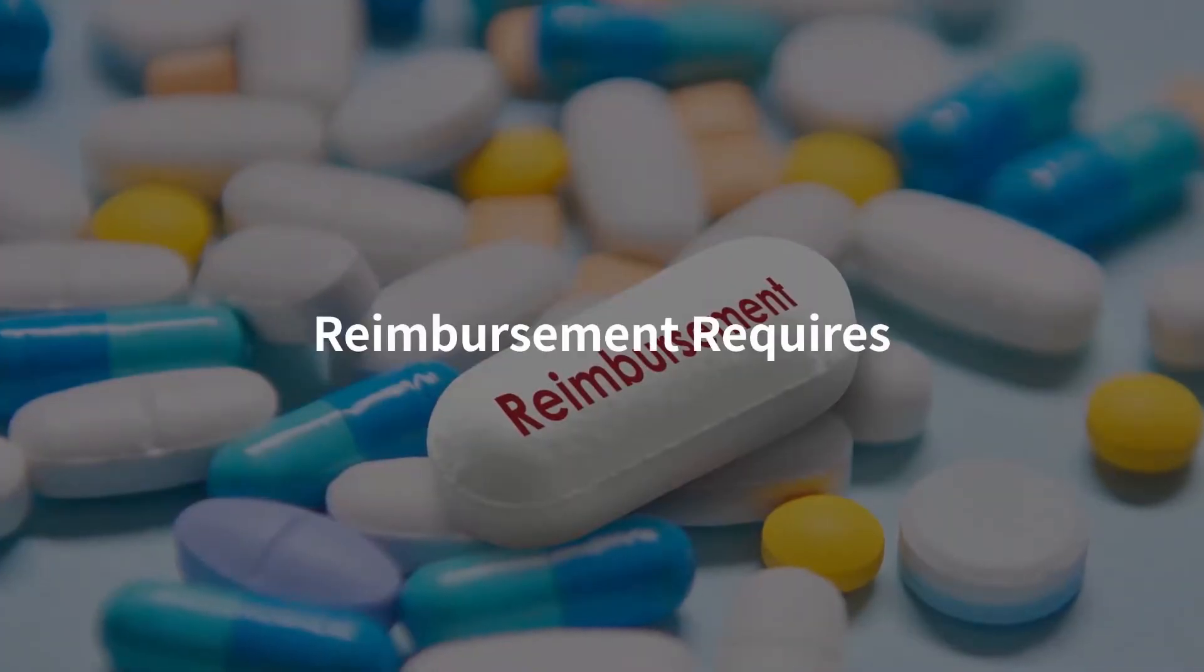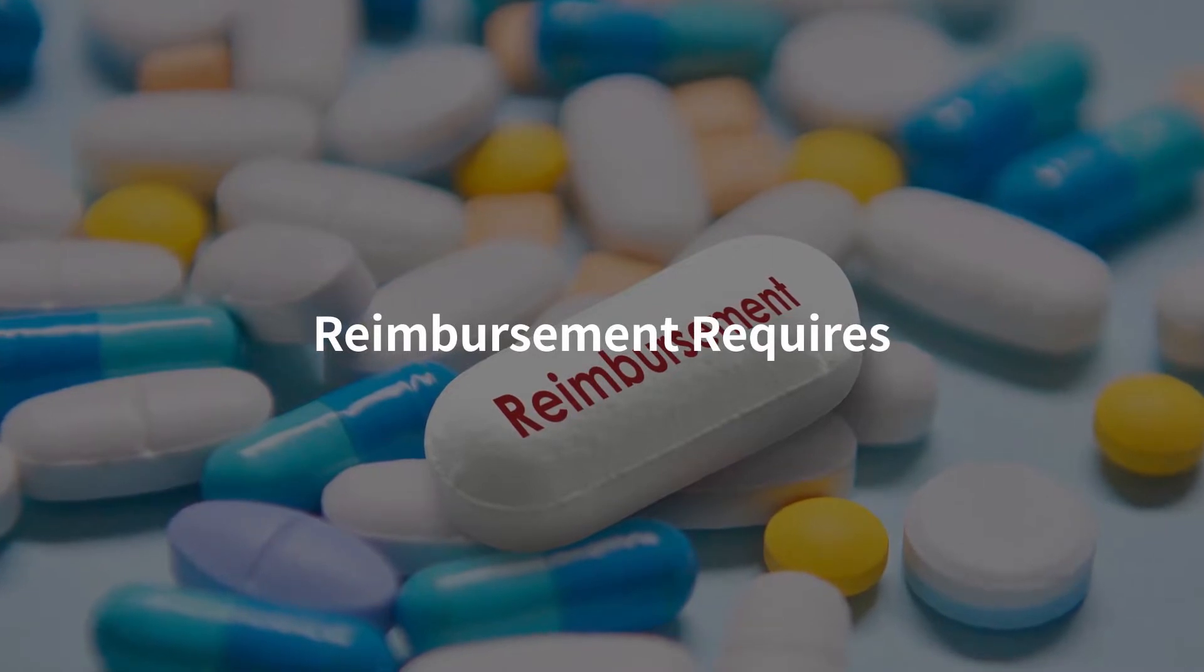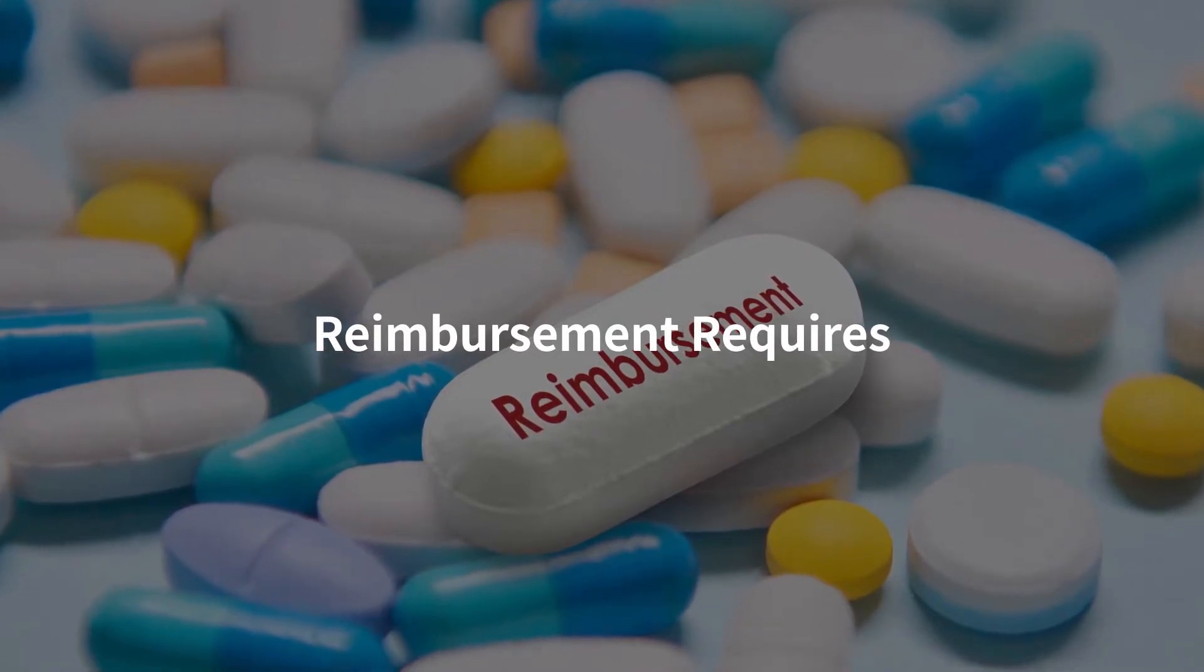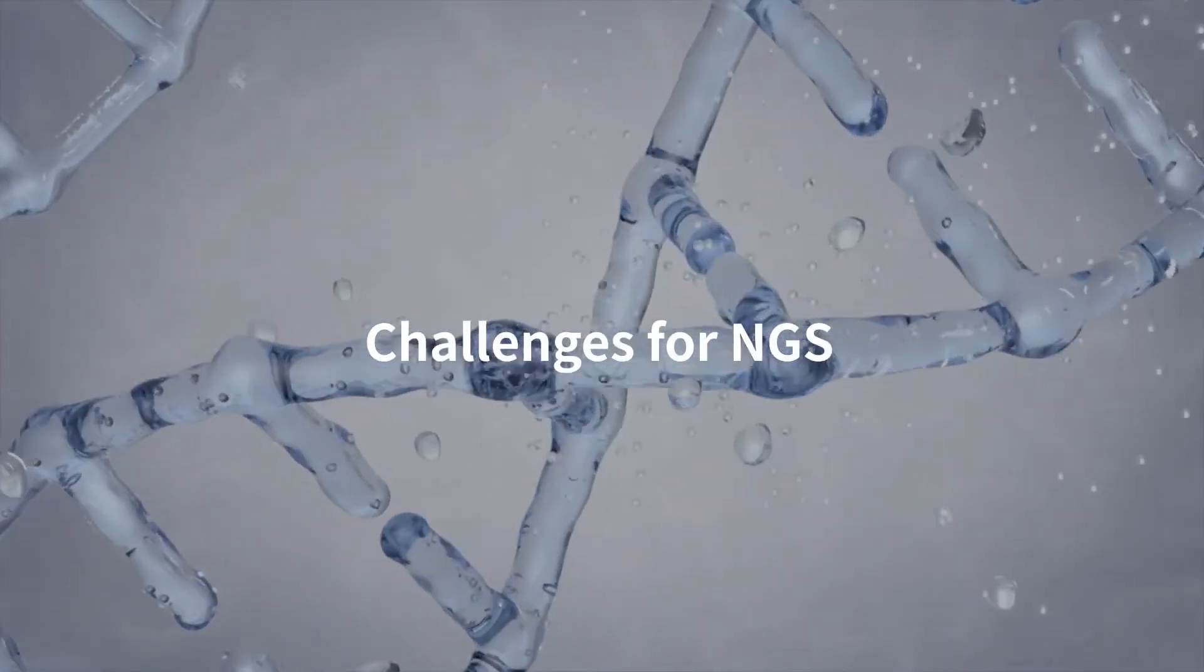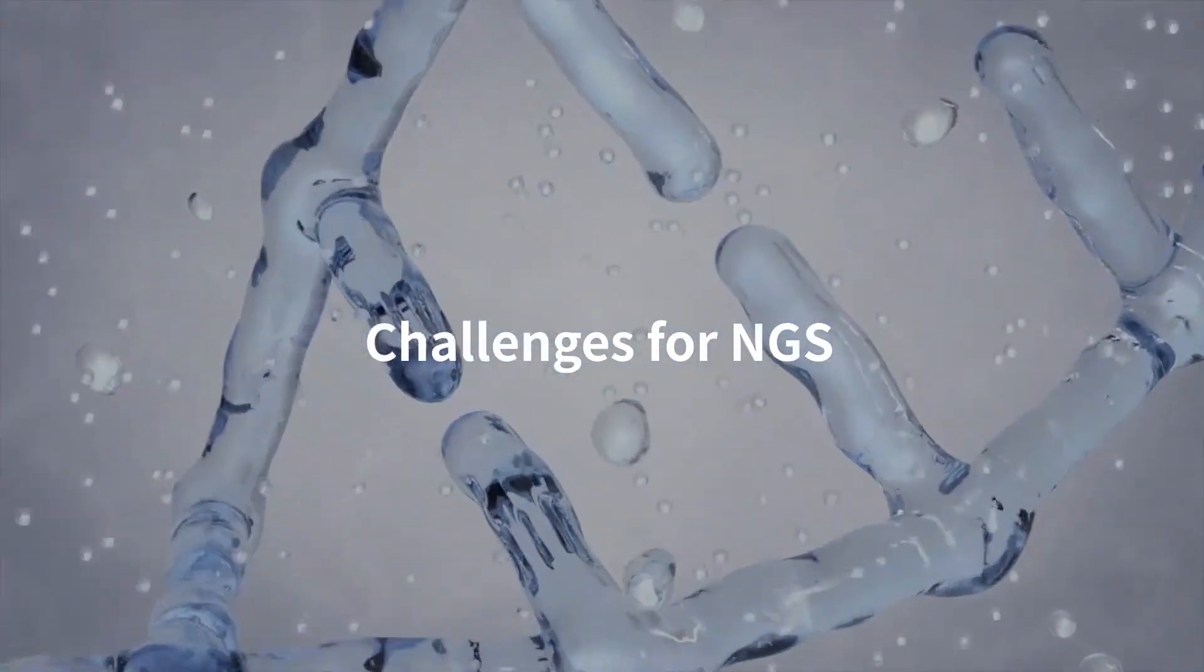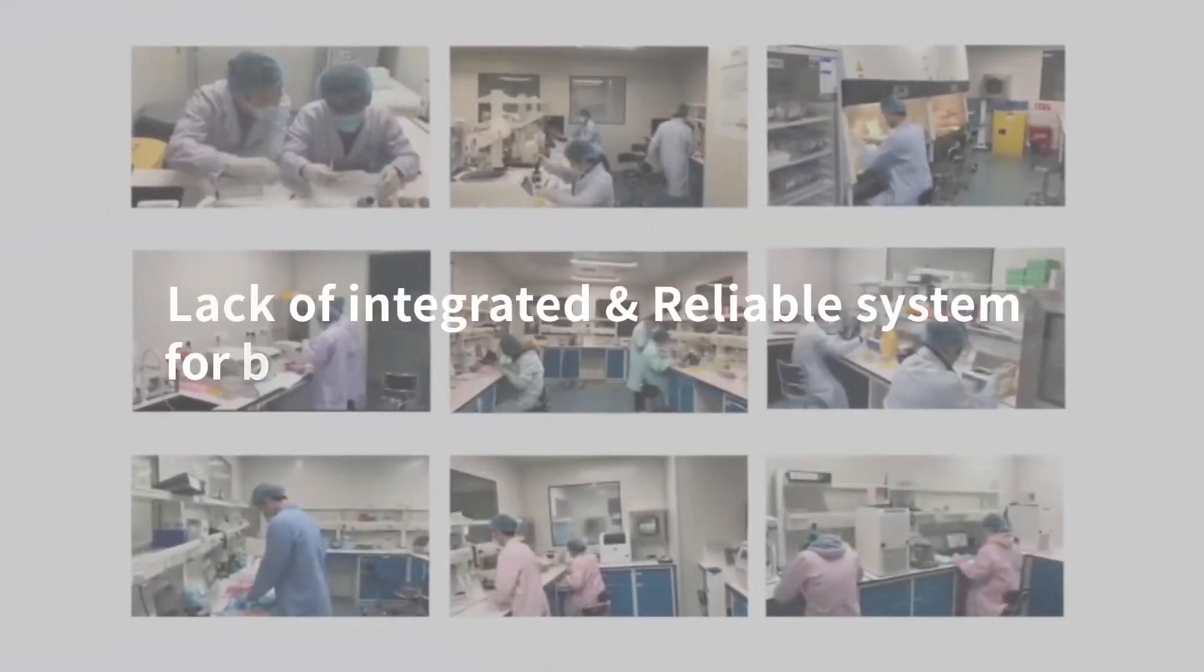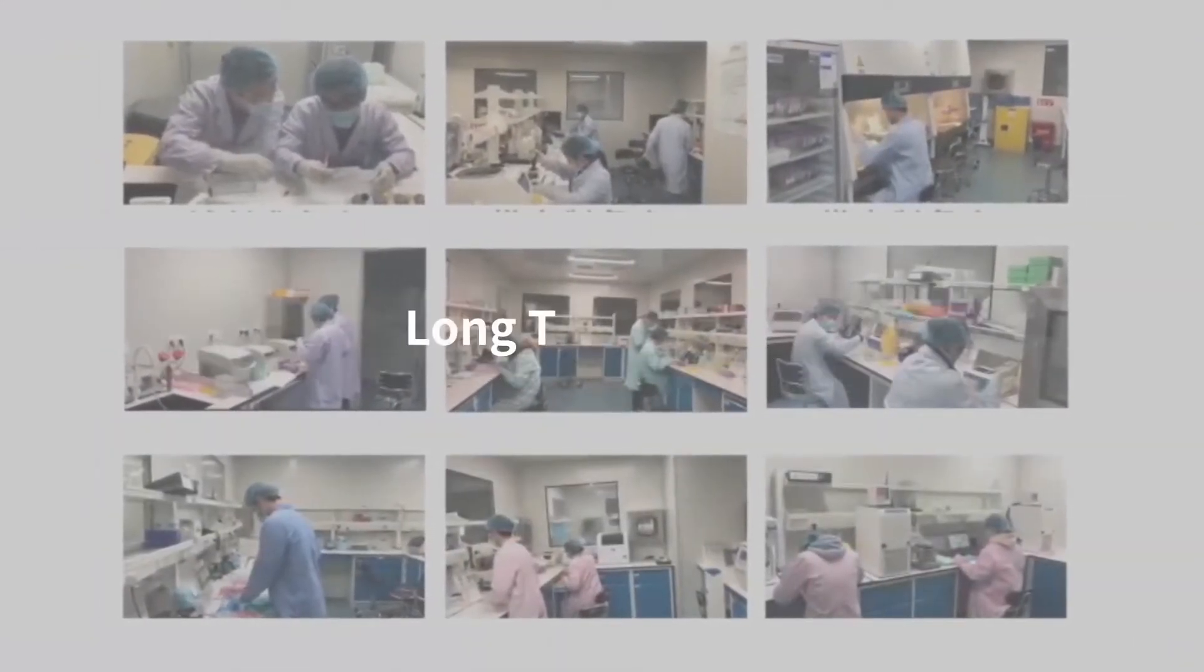Drug reimbursement requires gene testing evidence to support the clinical reimbursement benefit to patients. But why is cancer NGS testing not yet broadly accessible to many patients? Because traditional manual cancer NGS testing experimental process is very complex.